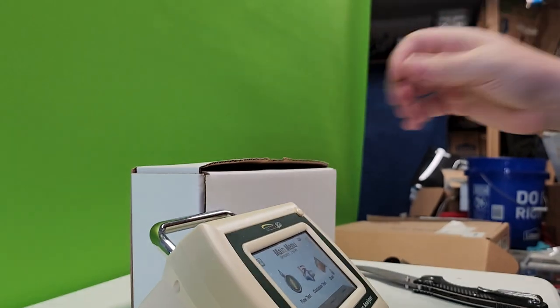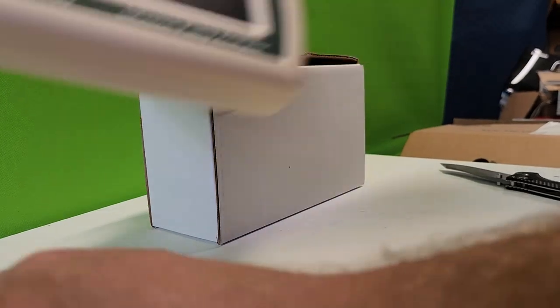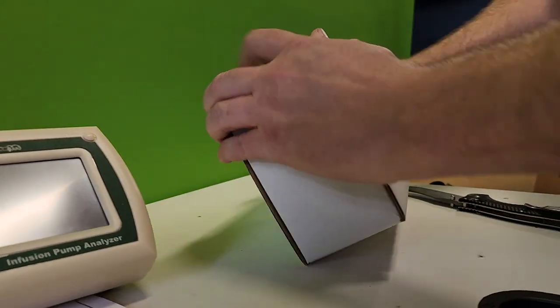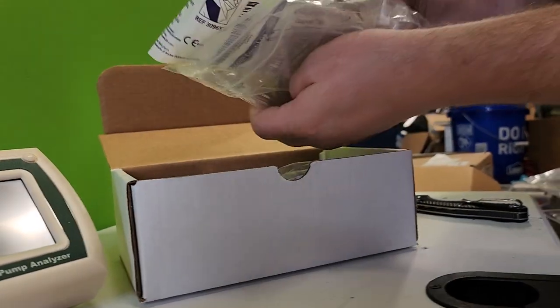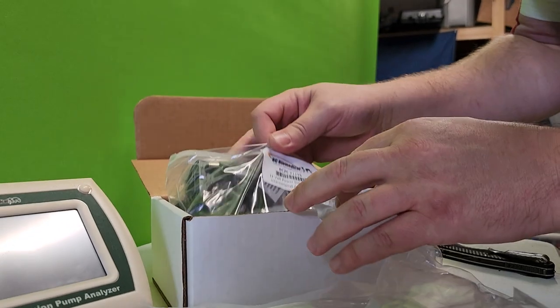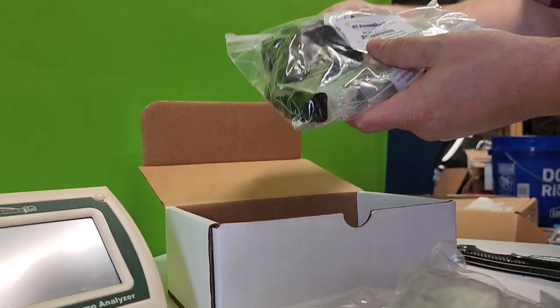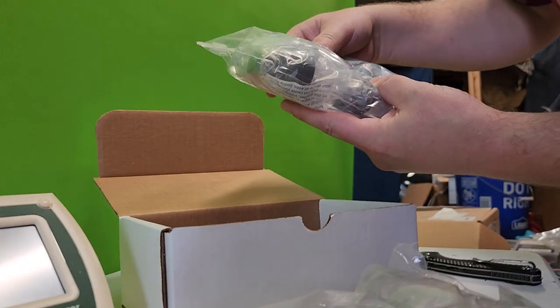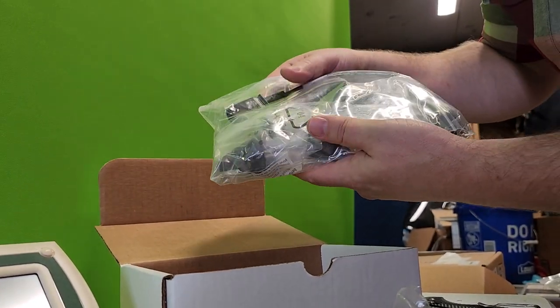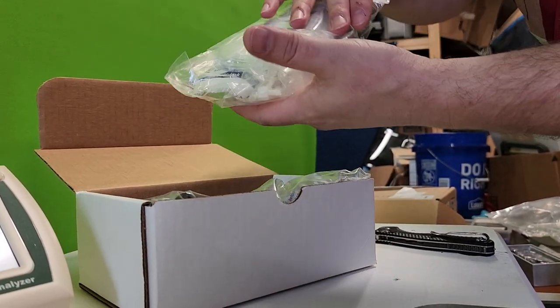Let's see what else we have in the box. Nice on/off switch. In the kit I have a syringe, some test tubing, the AC adapter along with different plug options for different areas of the world, and the USB cord. That's pretty simple - all you really need is a luer lock kit with a syringe.